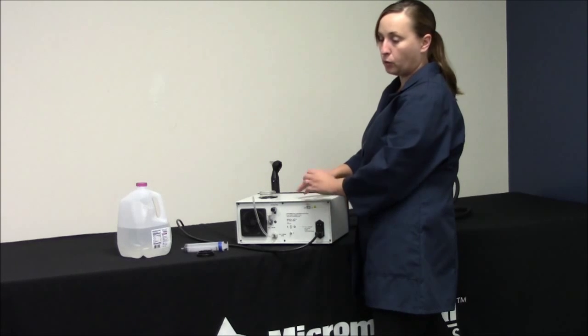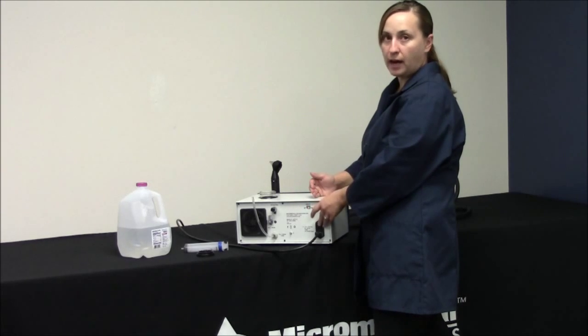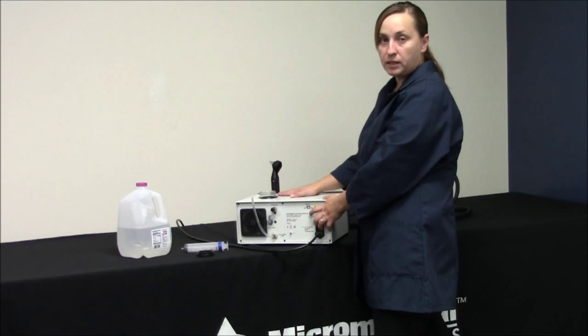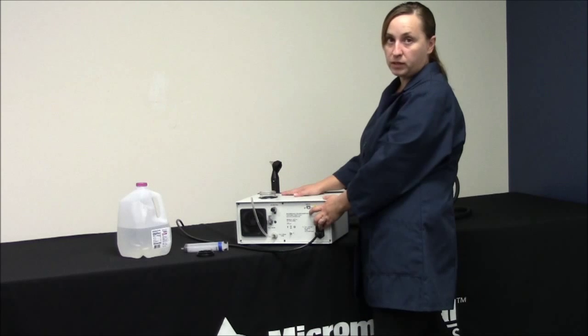What we're trying to do is we're trying to get the water pump to pump any air bubbles out so that way we are able to suck out all the air. As long as there's no air trapped in there then you won't have any cooling problems, but if there are air bubbles stuck in there you could potentially have problems with the irrigator cooling.